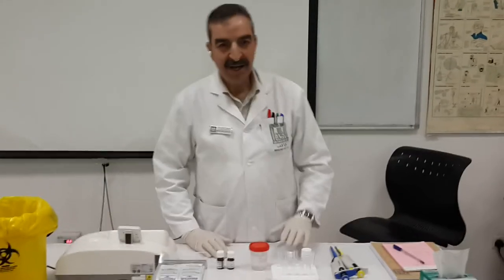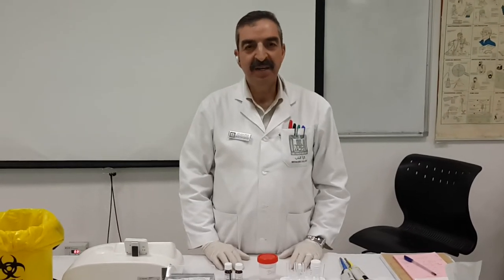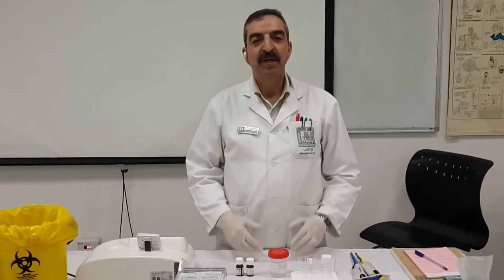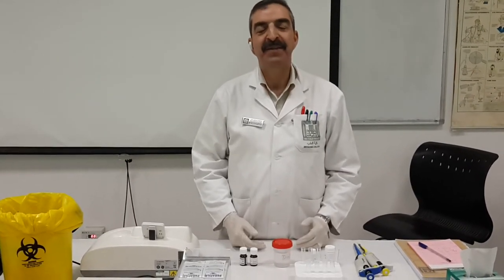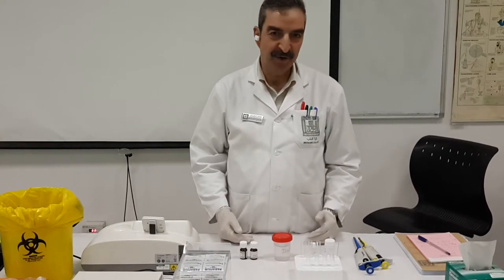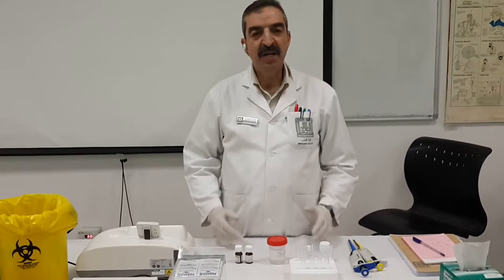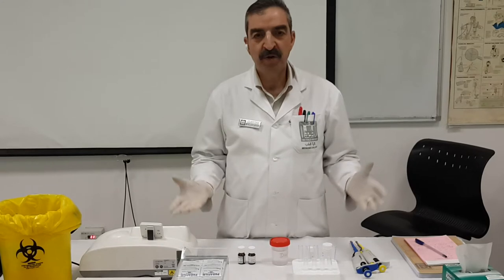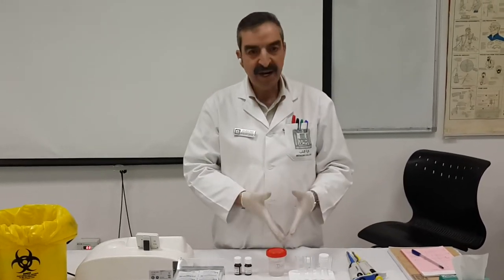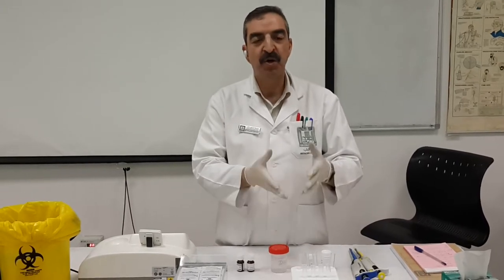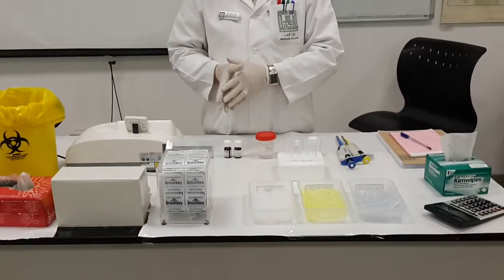As-salamu alaykum. Now, as we mentioned earlier, we will continue talking and determine another important trace element to the human, which is iron. Before you start your experiment, you have to be sure that everything around you is available, both reagents and disposables, in order to do the experiment itself.